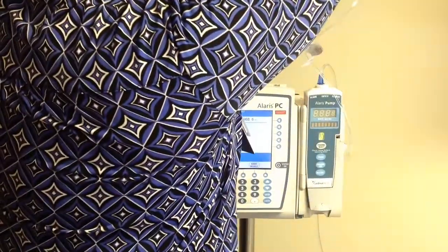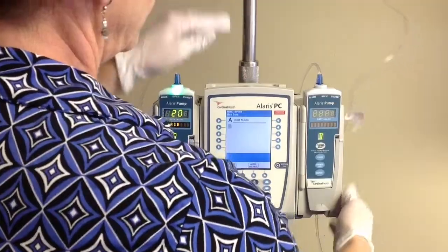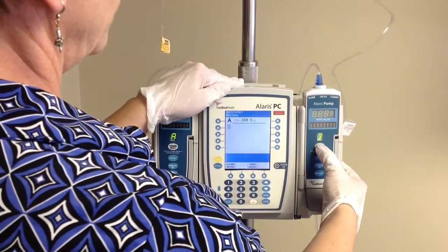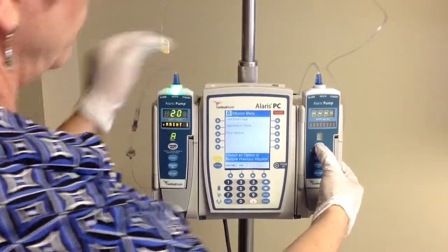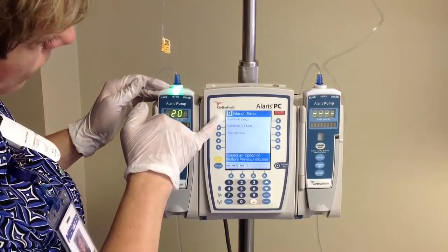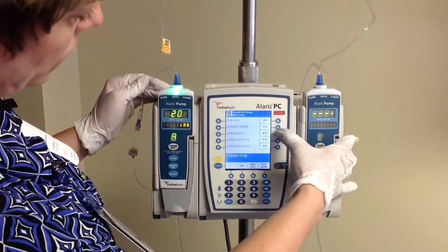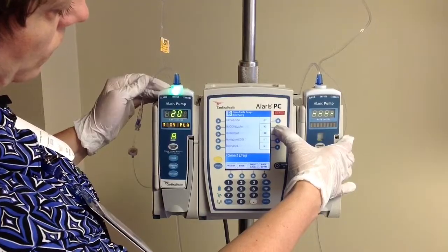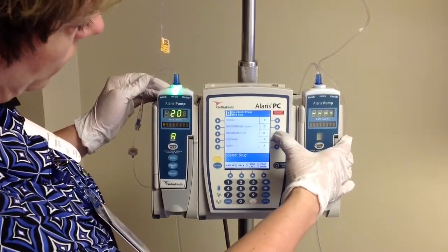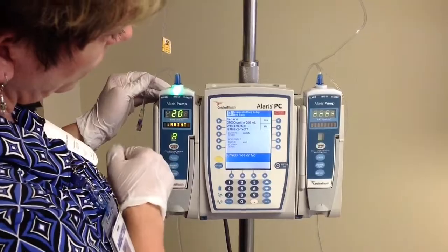So we're going to hang our heparin, and now we're going to start programming our pump. We're talking to the channel — do channel select. And this time, rather than fluids, we're going to use guardrail drugs. Choosing from the menu, using the alphabet on the right-hand side, we can get down to H and grab our heparin, which is the top option.